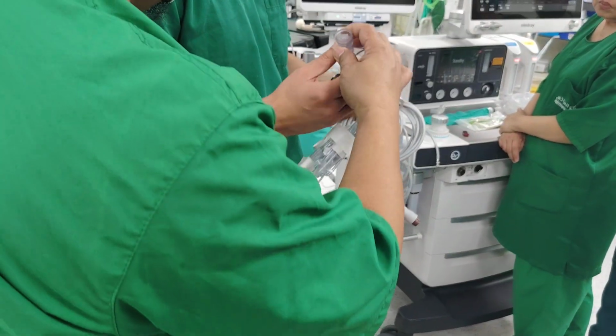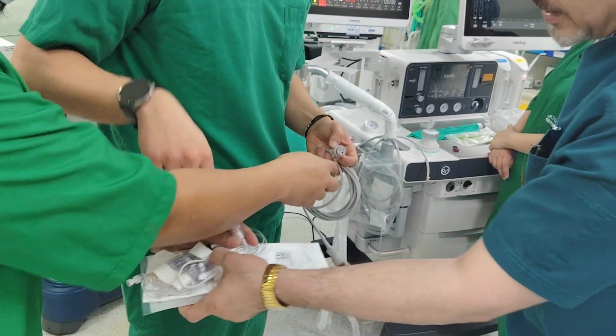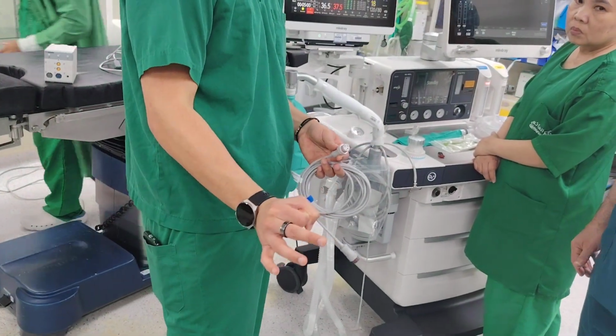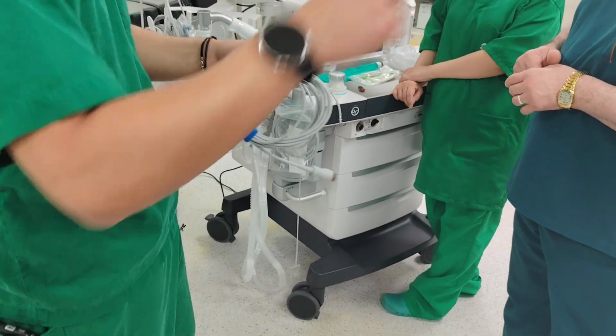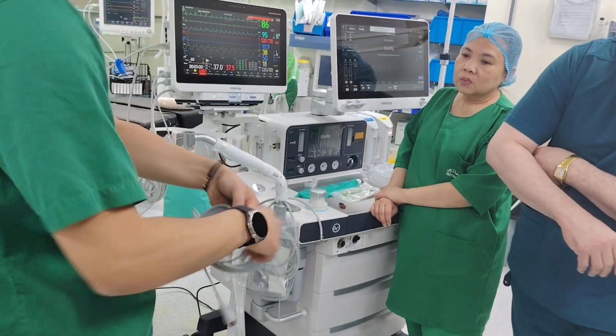No, not this, this one. So this is another version. This is for what? Another type of this one, doctor. Another type. Yeah, this is like a square with black. I think it's called BD, if I'm not mistaken. So anyways, you see, that one, that patient side, to this one, you connect it, and then that's it.